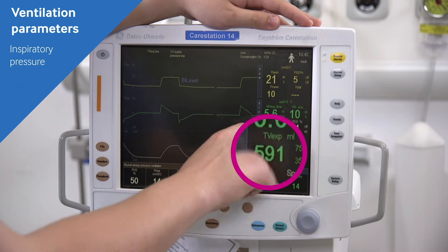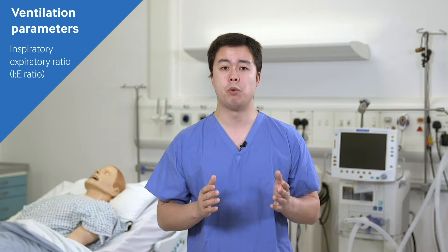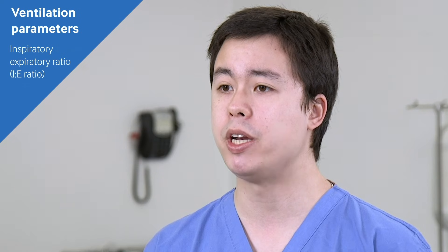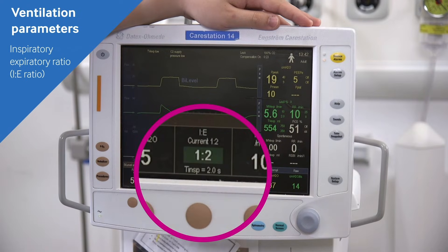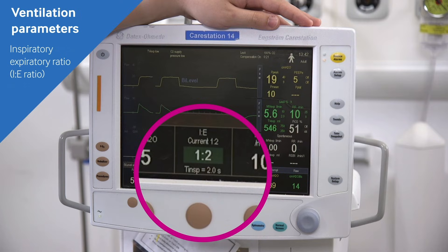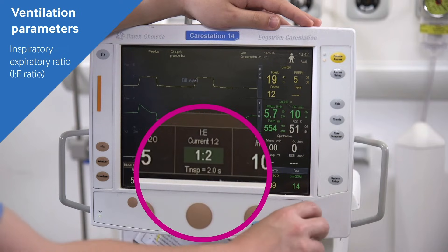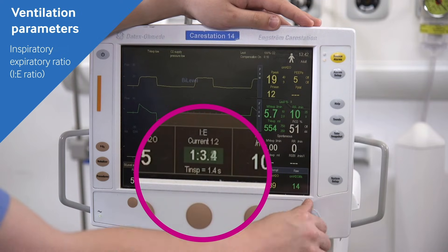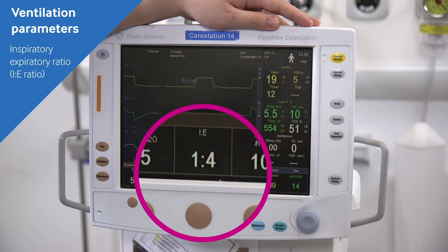You will look for the effect of changes by monitoring saturations, tidal volumes, and airway pressures. Next is the inspiratory-to-expiratory ratio, or I:E ratio — the ratio of the amount of time in one breath that a patient will spend either inspiring or expiring. A ratio of 1:2 is normal in most patients; however, in patients such as asthmatics, a longer expiratory phase of 1:3 or 1:4 might be appropriate, as bronchospasm prevents full exhalation.